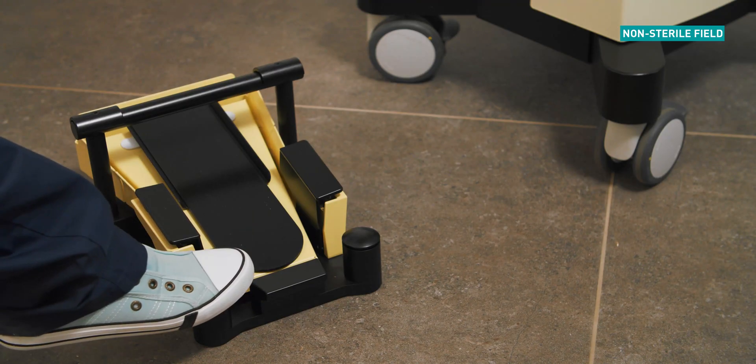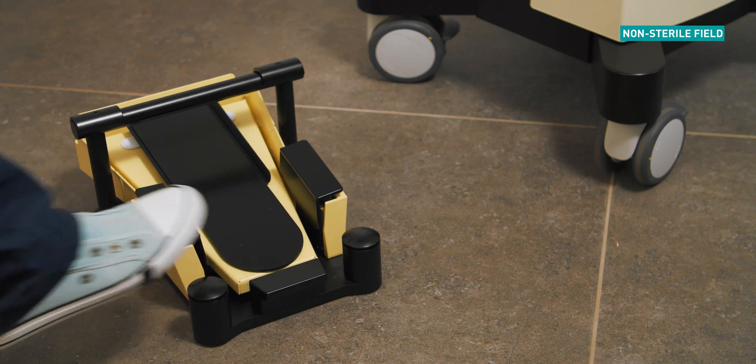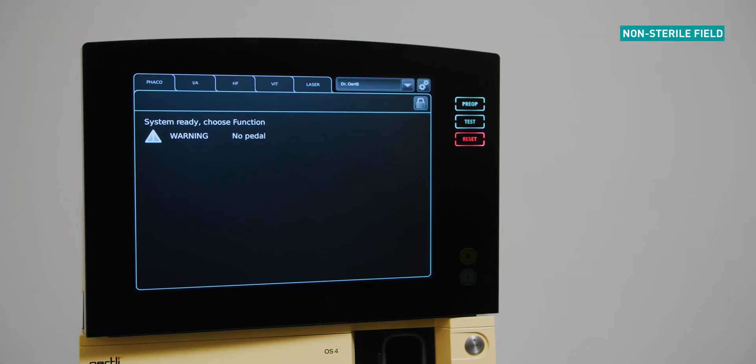Power on the foot pedal by stepping on the left heel switch for approximately five seconds. The no pedal message on the startup screen will disappear if successfully turned on. The wireless foot pedal takes approximately ten seconds to establish the connection.